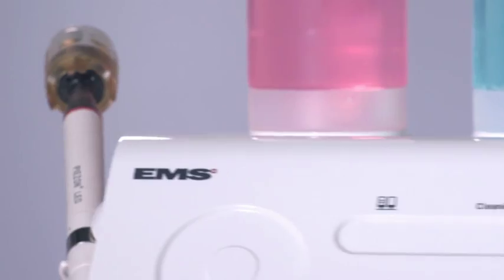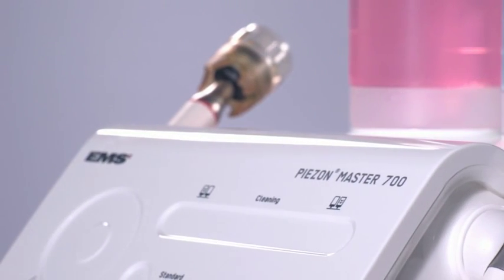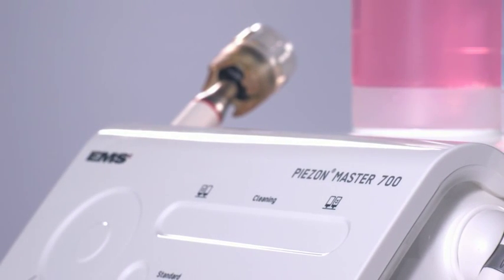At the end of each treatment, if you have used liquids other than water, you must wash out the liquid circuit.